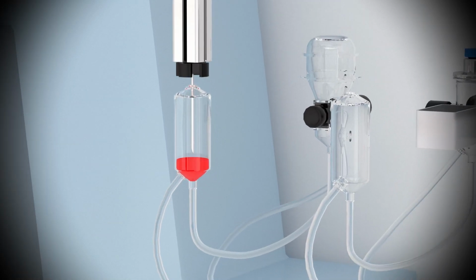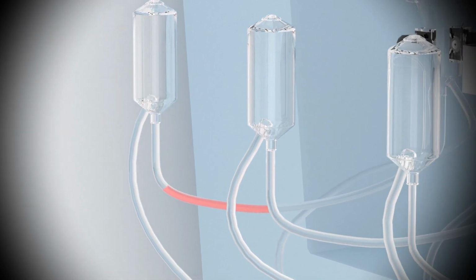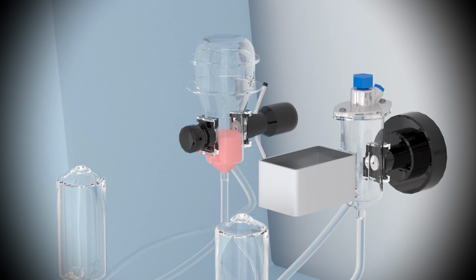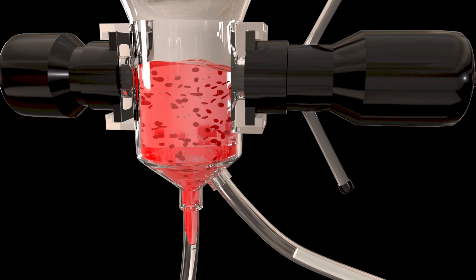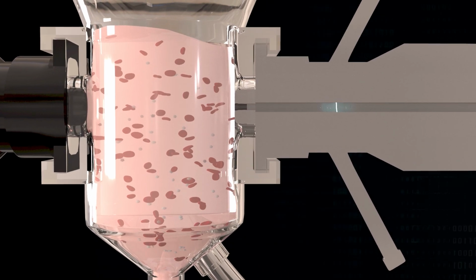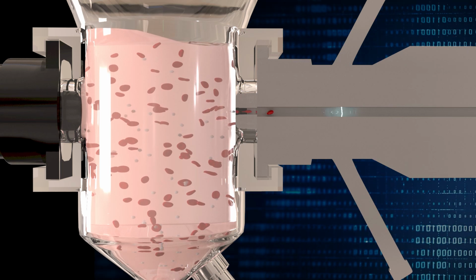The first aliquot, AL1, is delivered to the platelet red blood cell counting chamber. AL1 is diluted to make it possible for the cells to flow through the aperture single file. A direct current electrical circuit is applied to the aperture, and when the cell passes through it, it impedes the current. The larger the impedance, the larger the cell.